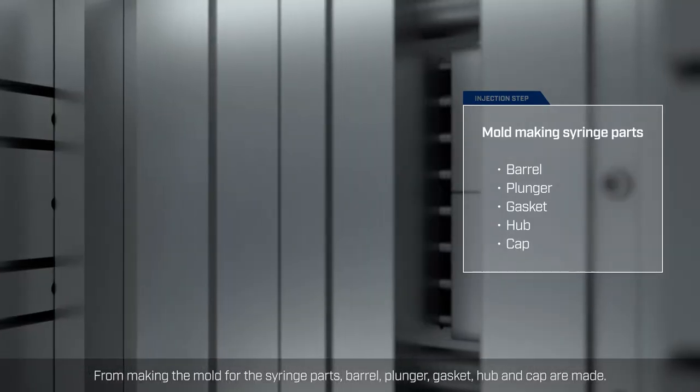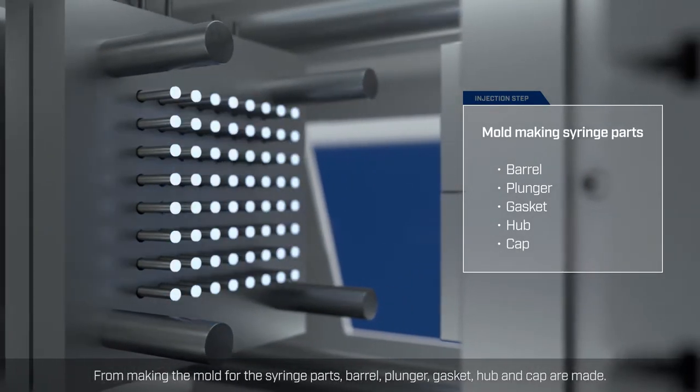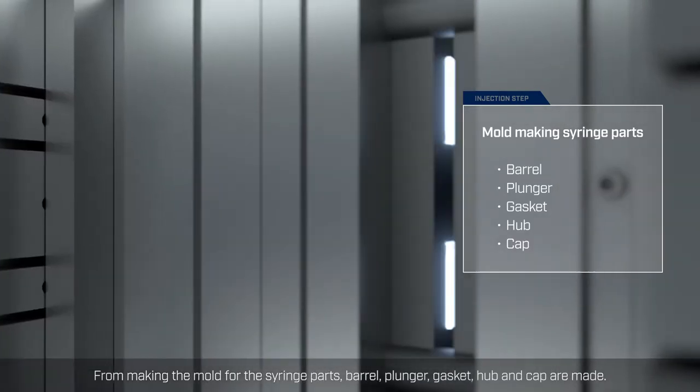From making the mold for the syringe parts, barrel, plunger, gasket, hub, and cap are made.